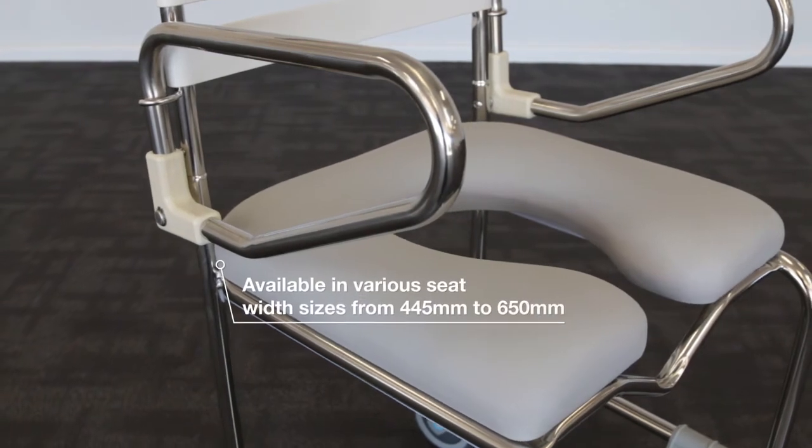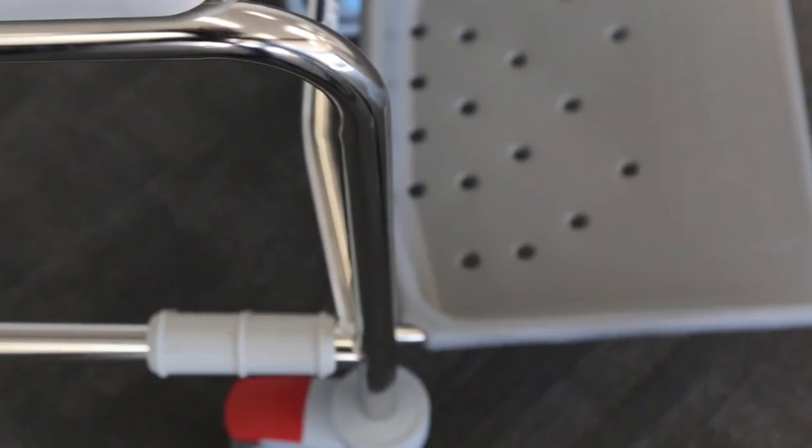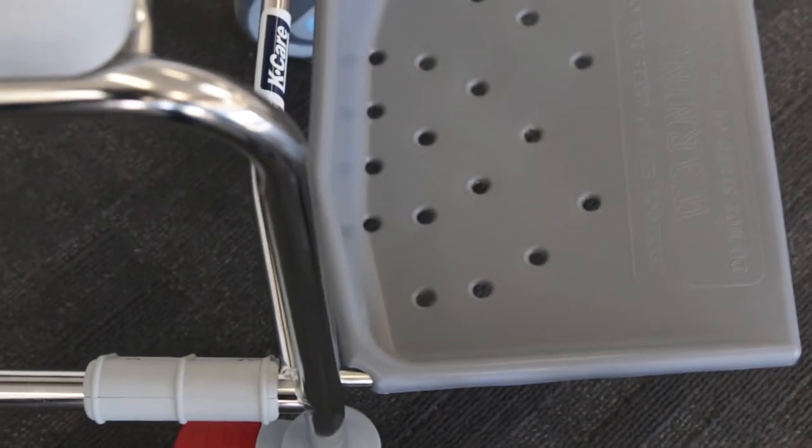The sliding footplate model comes in multiple sizes making it a versatile commode for a wide range of users.